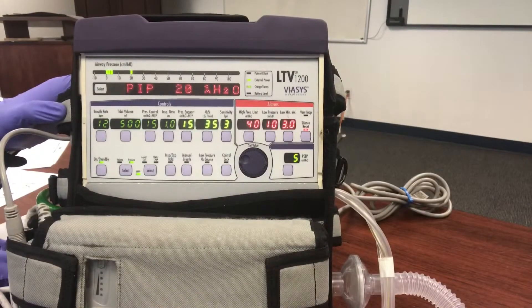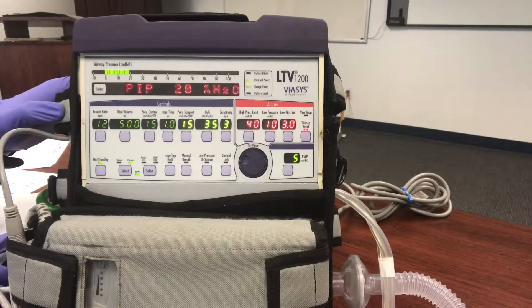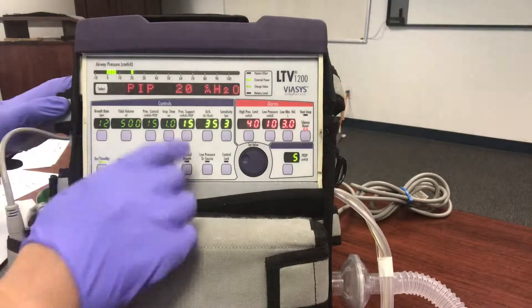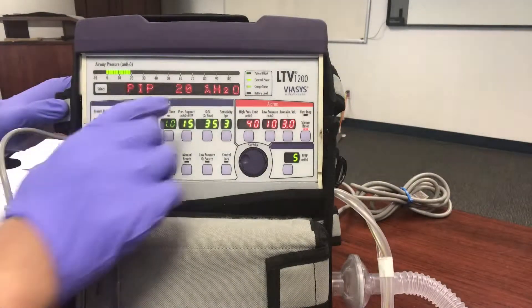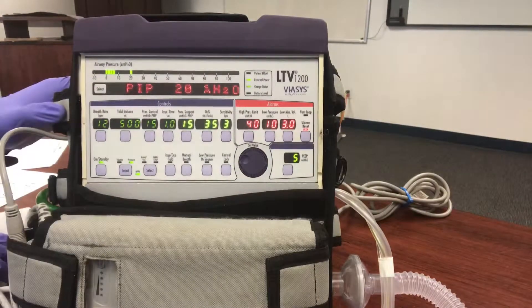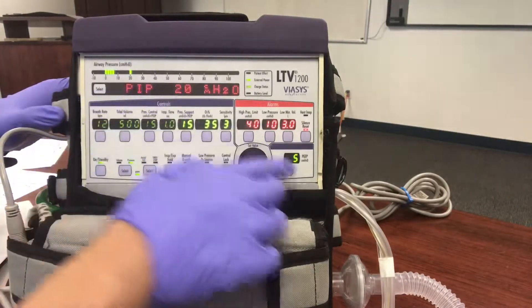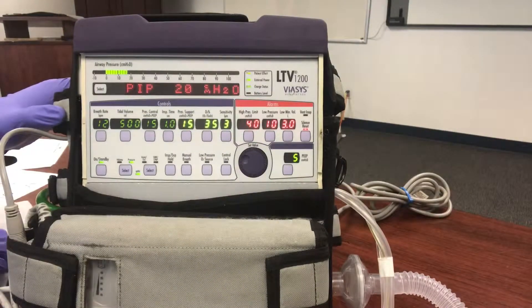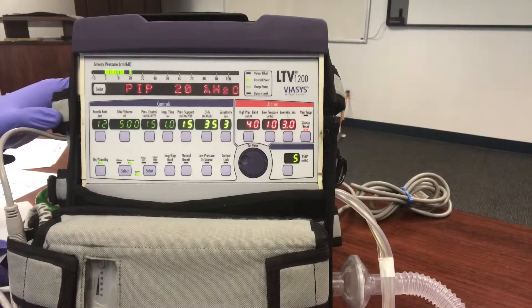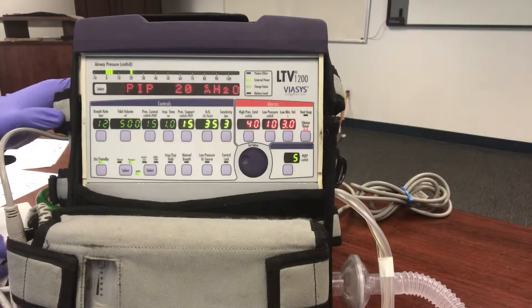Here's the tricky part about the LTV when it comes to BiPAP. Our BiPAP settings say 15 over 5, but those aren't the true settings — the actual settings are 20 over 5. If you go to the PIP — positive inspiratory pressure — it'll show you the true inspiratory pressure being given to the patient. 20 over 5 is a bit high for starting off. Typically we start a patient in the ER at 10 over 5 and titrate up.